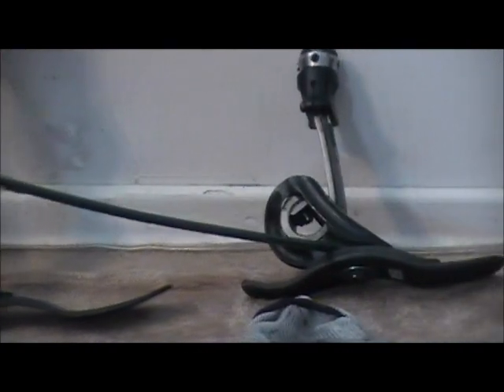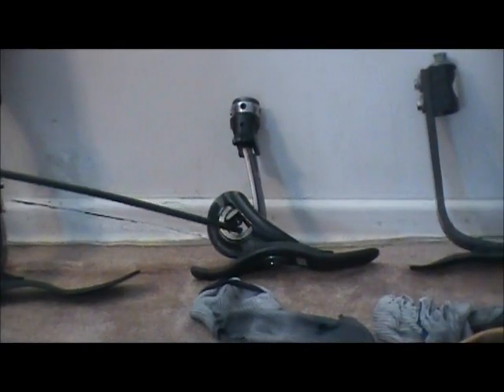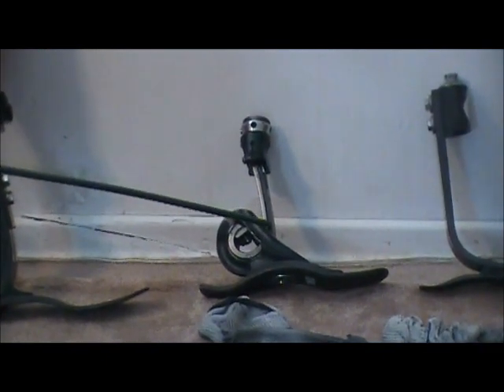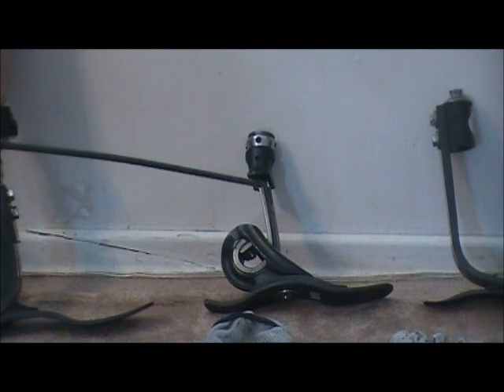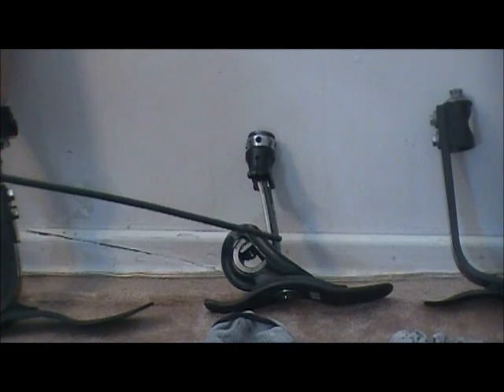This is their original foot — it's a Perfect Stride. This circular area and the reverse angle of the shaft help the foot to have more dynamic movement. It can move inside, outside, forward and back. It's more of a natural ankle movement for uneven terrain. I really like this foot.